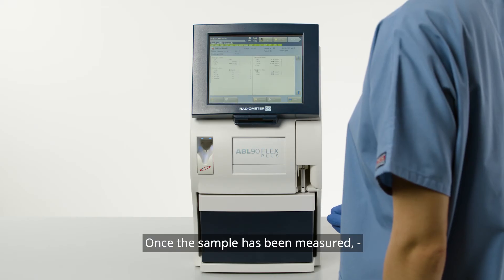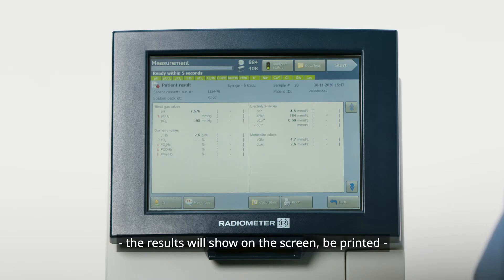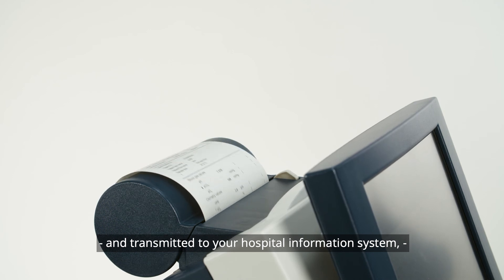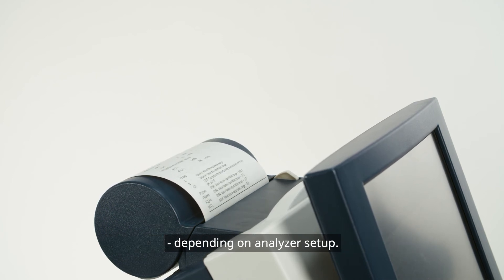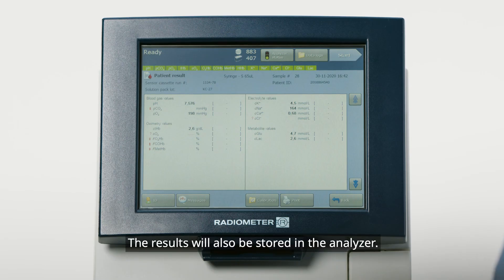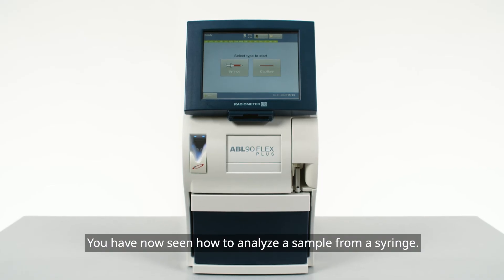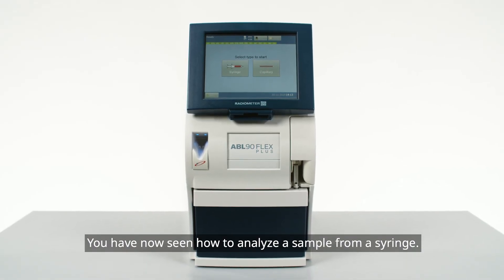Once the sample has been measured, the results will show on the screen, be printed, and transmitted to your hospital information system, depending on analyzer setup. The results will also be stored in the analyzer. You have now seen how to analyze a sample from a syringe.